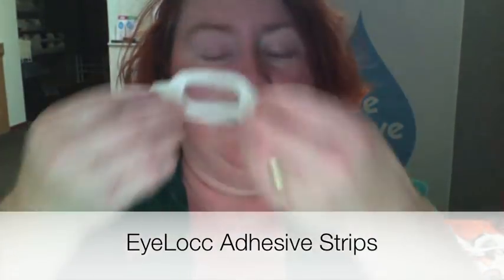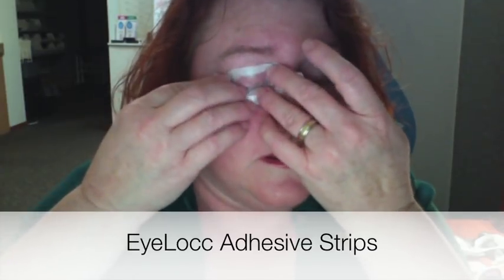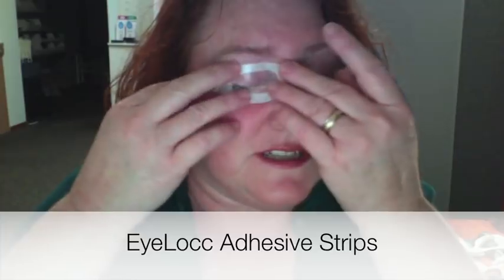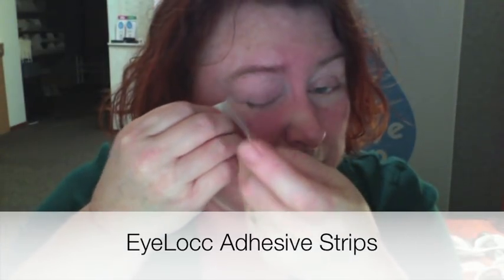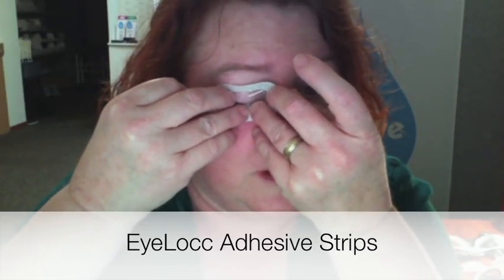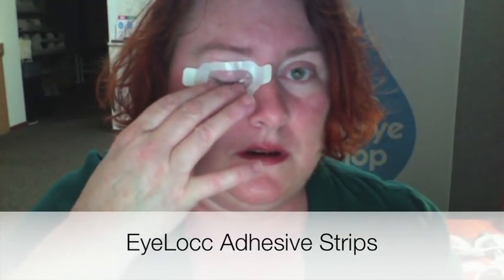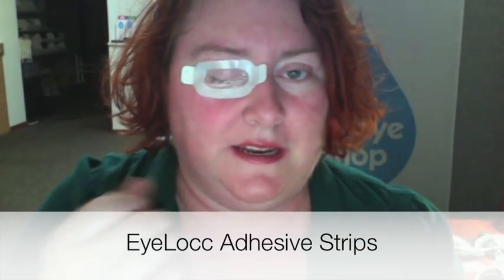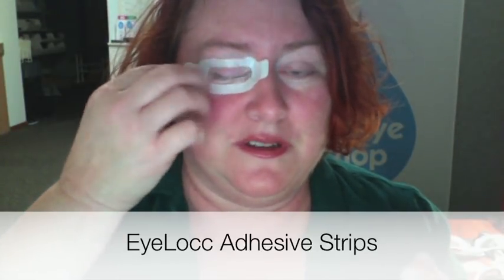So this is in place of a tape. I can't really see what I'm doing so I may not have it positioned perfectly here. But if you're careful with how you put it on, you can make sure that the window part goes over your lashes, so you're getting the least possible adhesive on the lashes, which will also make it easier to take off.